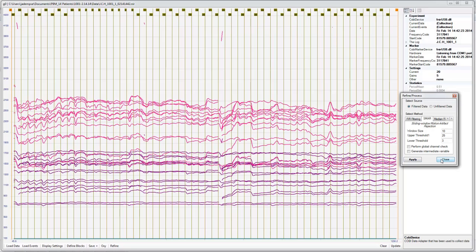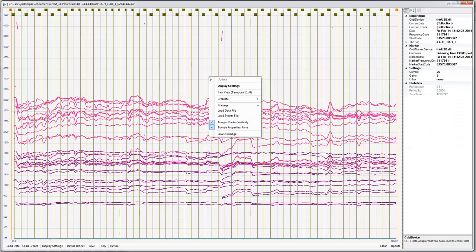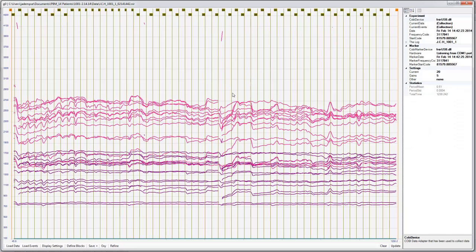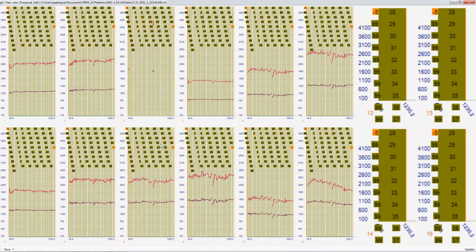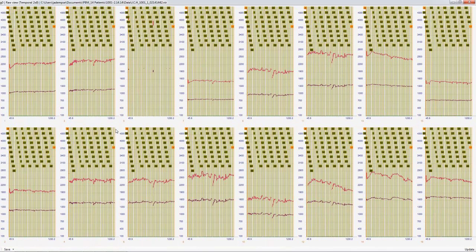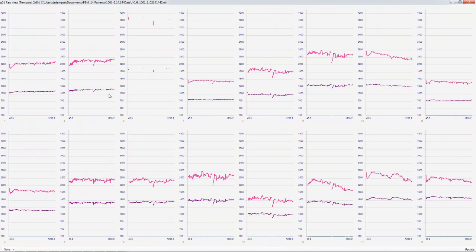Now, you normally won't have to do this for all participants. But I'm actually going to go to my raw view now. And I can see what each one of my probe data elements look like. Now I can actually right click on one of them and say toggle marker visibility, which will remove the markers temporarily. And you can clearly see that we're getting nothing from optode 5. All the data was rejected.